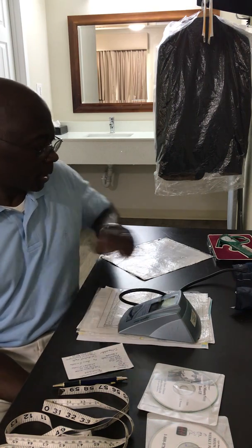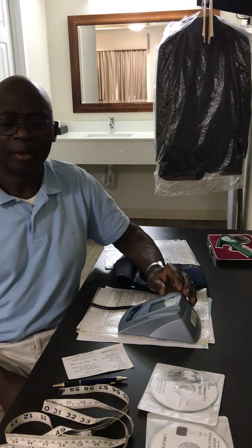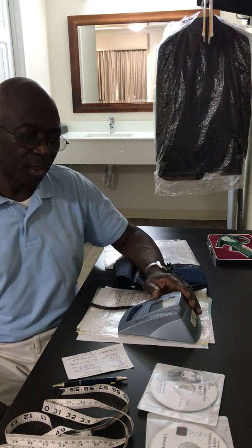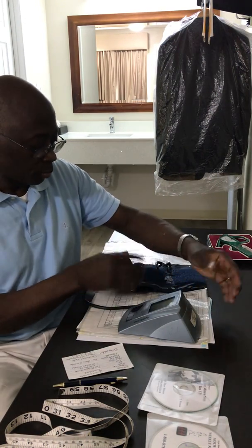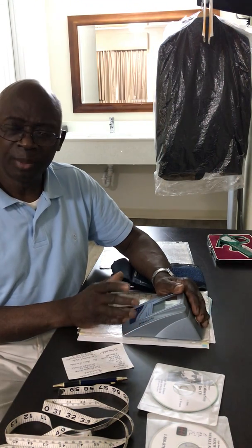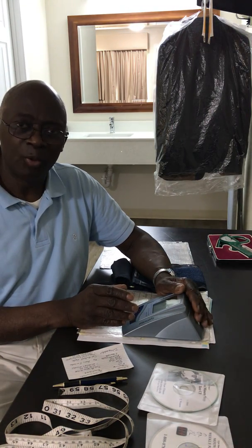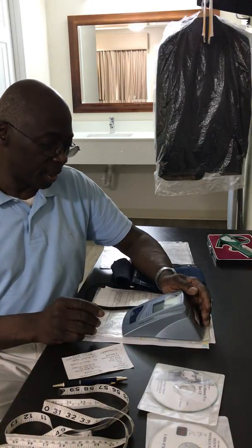It's very important that you keep track of your blood pressure. There are electronic battery-operated units and there's the old stethoscope. Being from the old school, I prefer the stethoscope, but you can't take your blood pressure with a stethoscope unless you have a self-taking unit that attaches the stethoscope to the cuff so you don't need three hands. I've found that electronic units typically show readings about 10 millimeters of mercury higher on the systolic pressure than I get with the stethoscope.